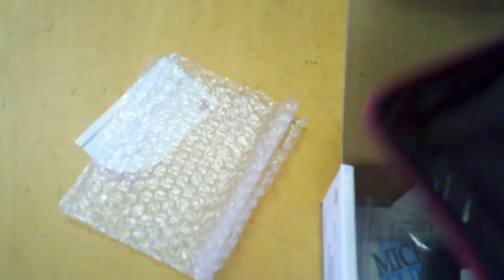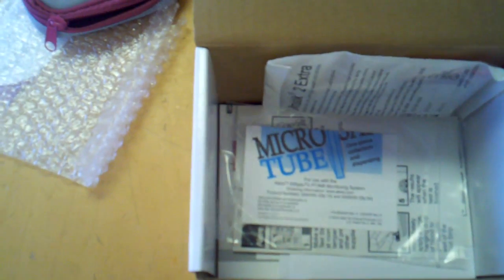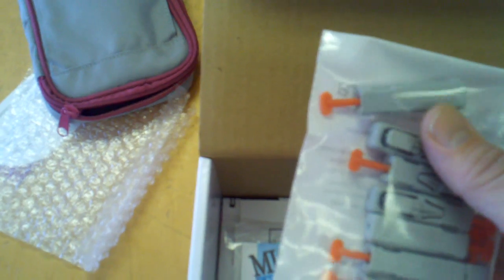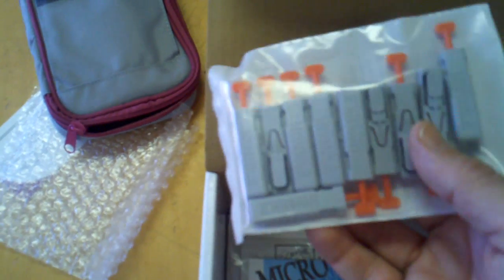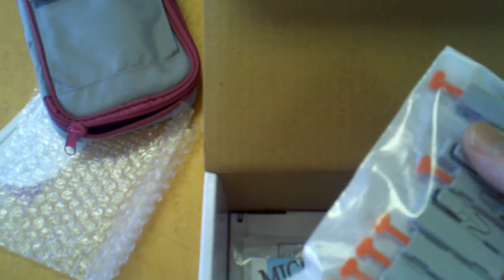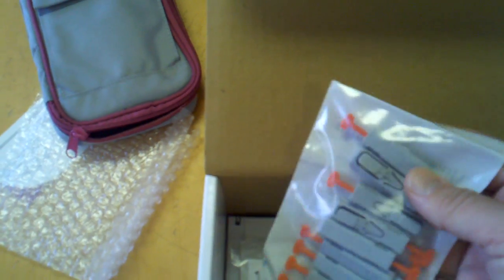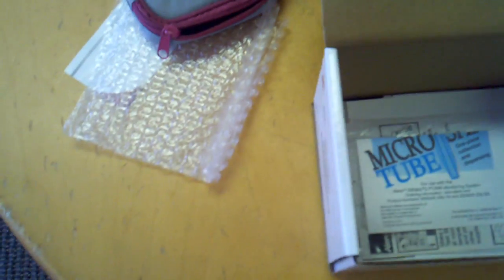It does come with a place where you can put your lancets, and a couple of strips. This is the actual AC adapter power supply — very small and light also. It comes with the Unistick 2, which is the high end. You can't find any better lancets than these. It's a very simple poking method — you don't need to do anything except remove the orange cap, and then just stick your finger, arm, or wherever, and it gets a very small amount of blood needed.